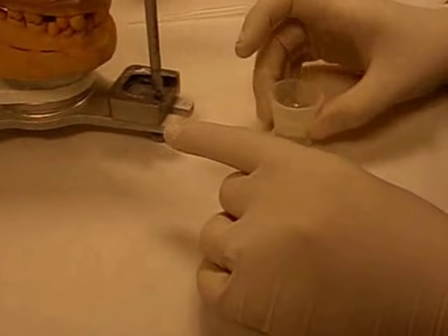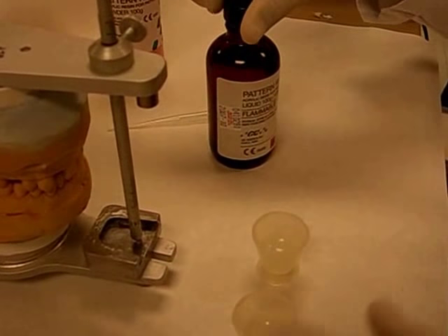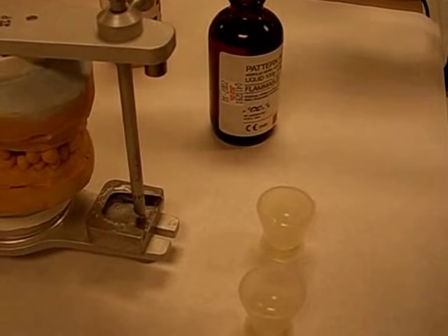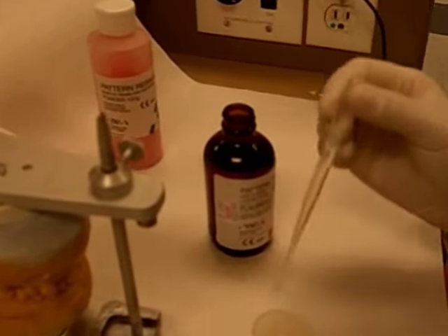I'm going to start mixing the acrylic. I will have to use two cups because of the amount that is required — you can see the size of the dovetail metal guide table. So we'll have to mix two.